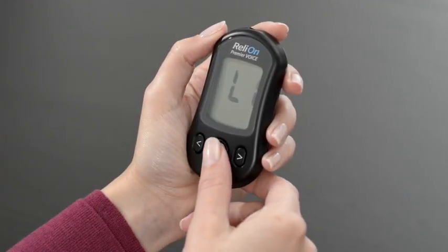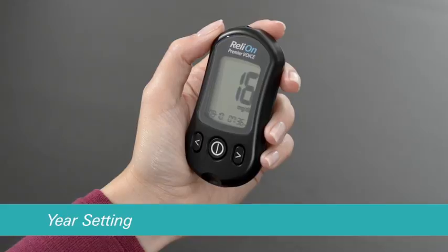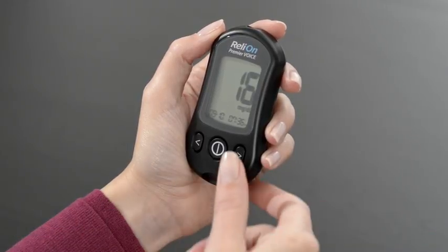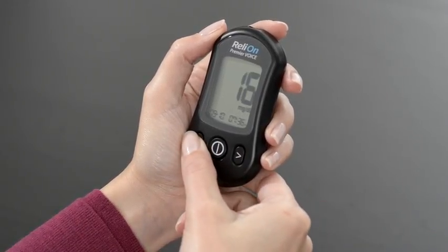Press the center button again to proceed to the year setting. Use the left or right arrow buttons to set the year.